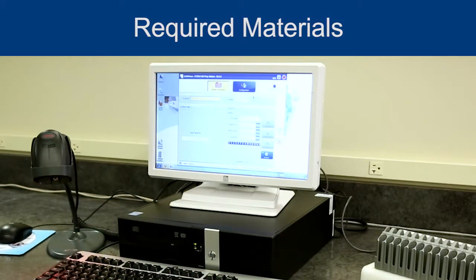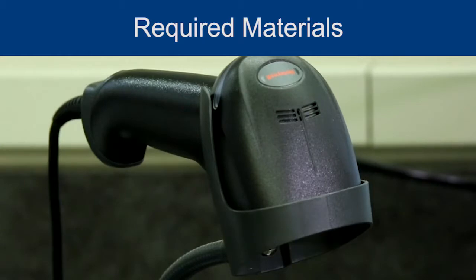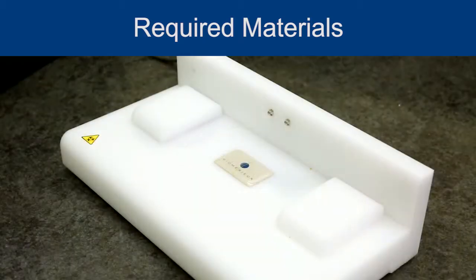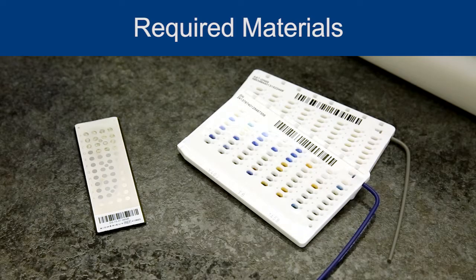Required materials: a computer with VITEK PrepStation software, a monitor, a keyboard and mouse, a barcode scanner, a VITEK MS DS target slide, a cassette docking station, also referred to as the VITEK MS PrepStation hardware, a VITEK 2 cassette with button memory module, and VITEK 2 test cards.